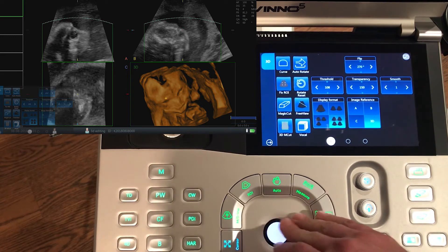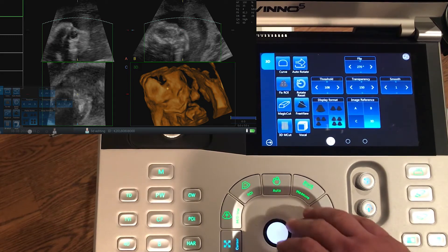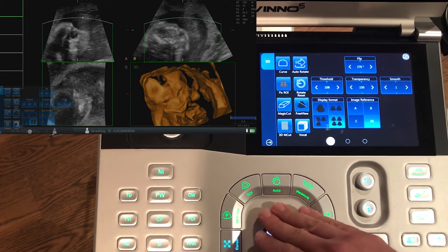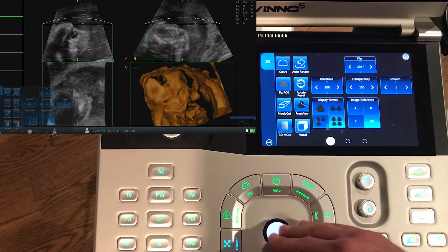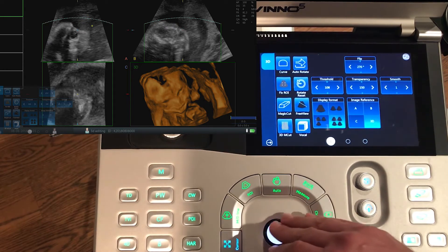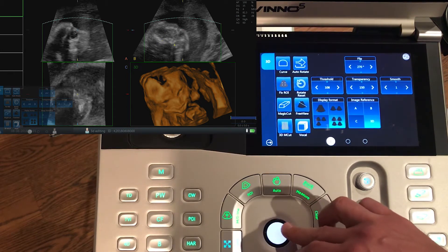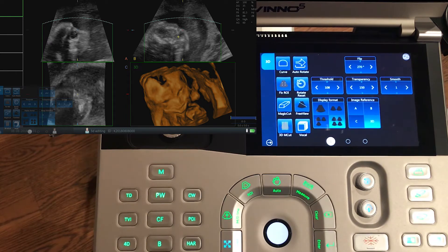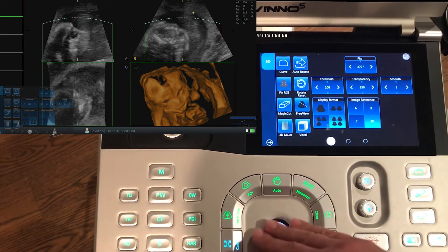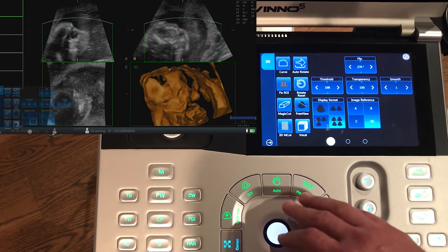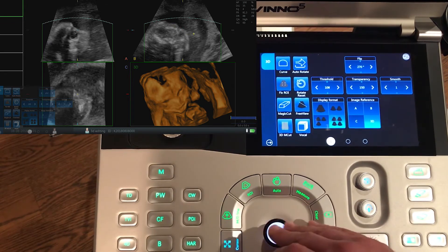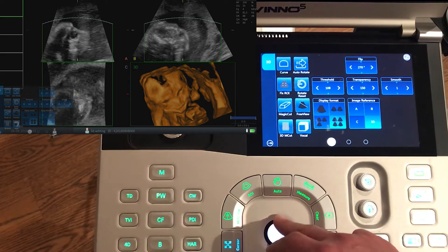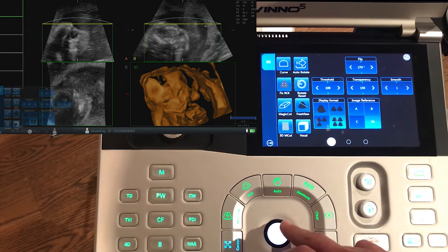A couple of things I notice straight away: number one, this is quite dark, which means the gain probably needs to be increased. Number two, there's something — I don't know if that's artifact or part of something else — but it's going to be in the way of baby's face; we can get rid of that by adjusting the ROI lines. I also notice these wavy lines, which usually indicate that baby moved during the 3D acquisition, meaning baby's face will be distorted somewhere. If baby's moving a lot and you need a quicker acquisition, you can either make a smaller ROI box or change the quality from high to mid or low.